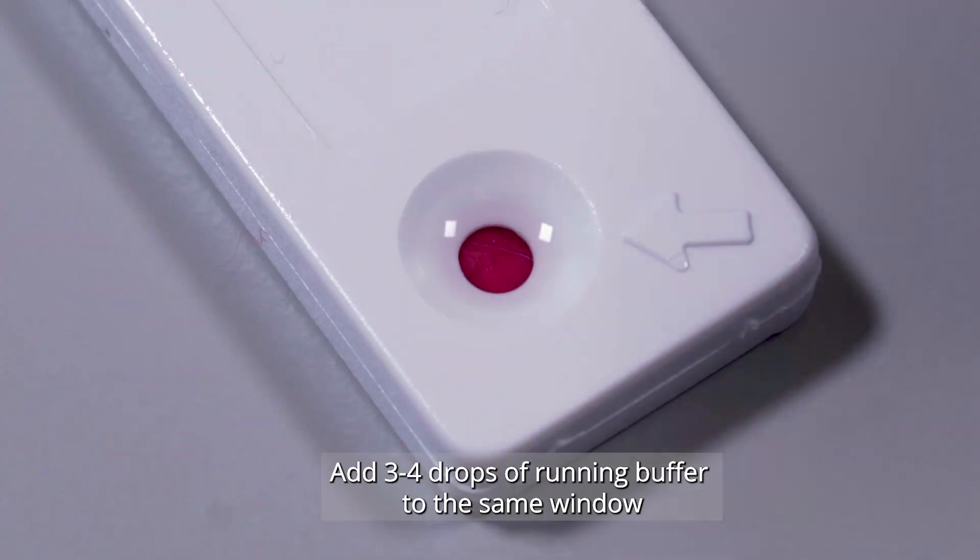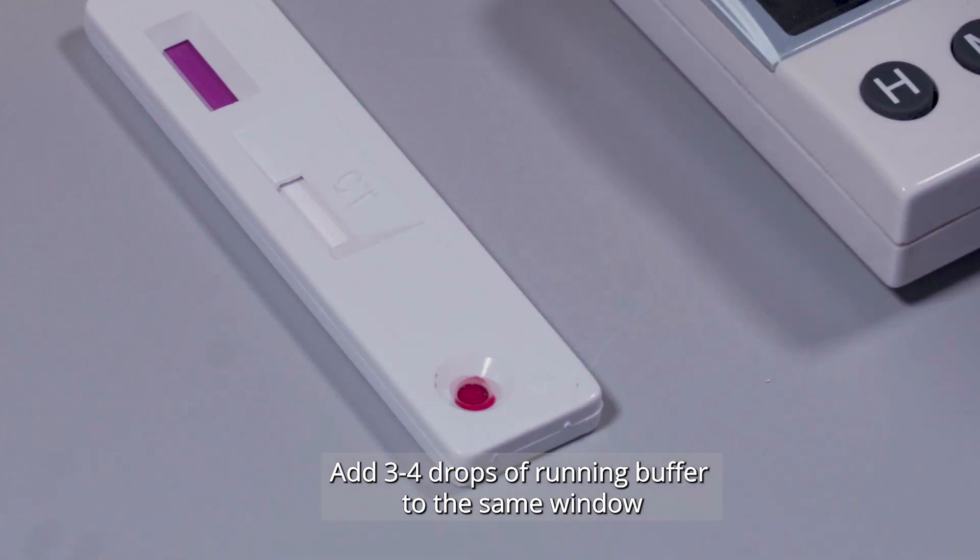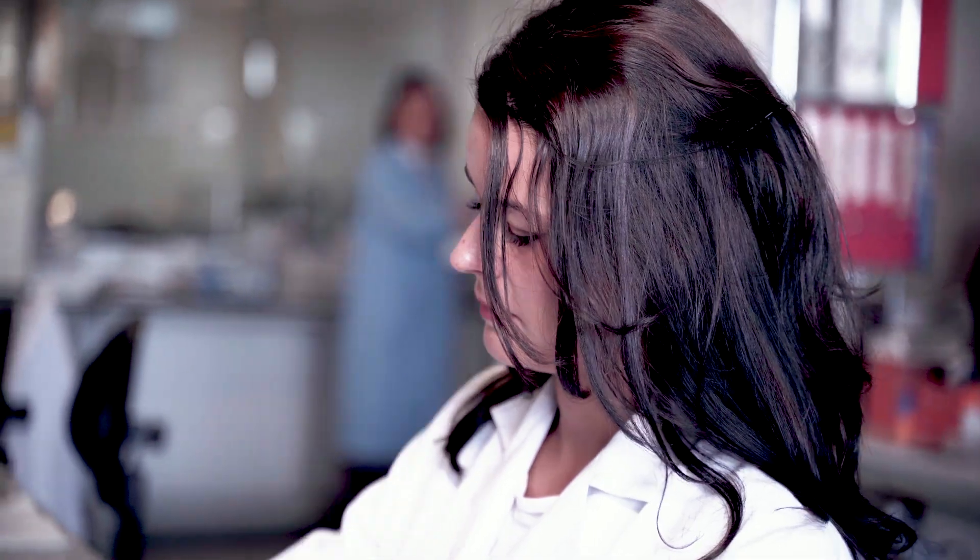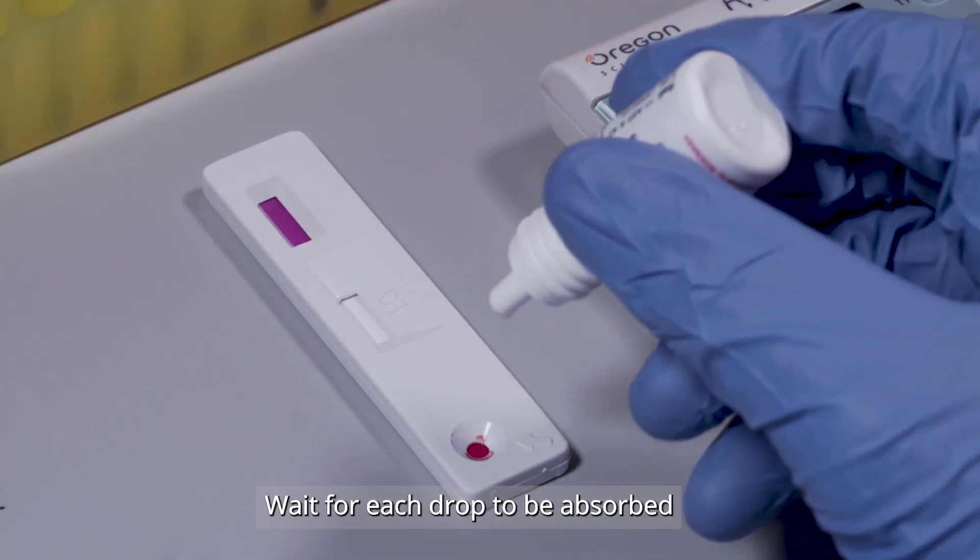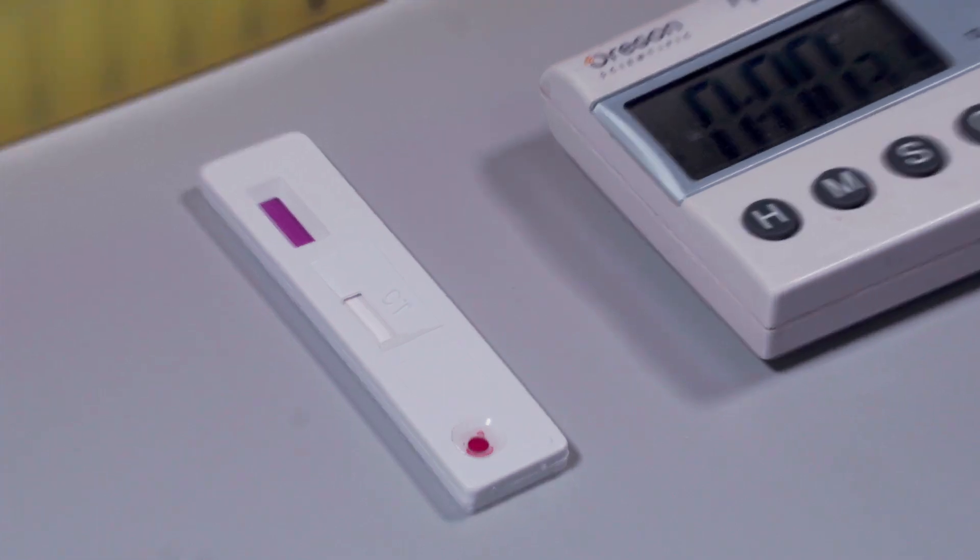Add 3 to 4 drops of the running buffer under the same round window. Buffer must be added drop by drop, waiting for total absorption between drops.